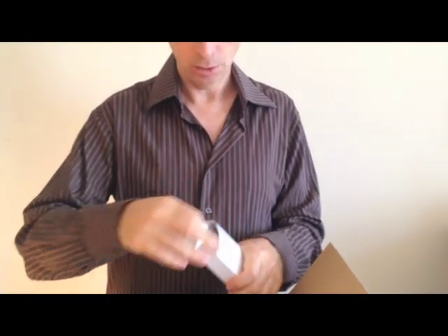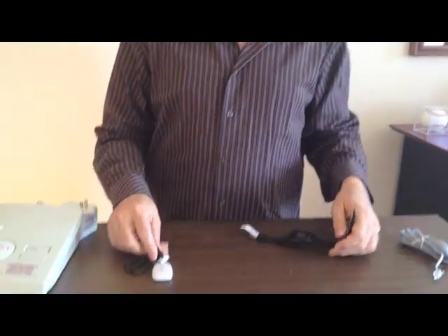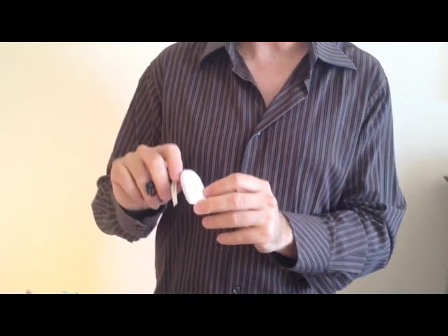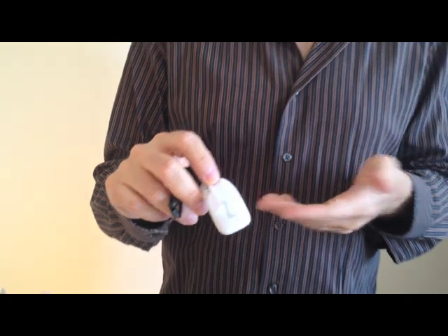These are the bracelets — the bracelet and the pendant. The bracelet actually looks like a watch; it's kind of cool looking. You can wear this thing and nobody would know you're wearing a medical bracelet — they'd just think you're wearing some kind of neat bracelet. And the pendant, obviously you take the warning label off, and you just wear it around your neck. It also looks like a little piece of jewelry, but of course you can put it into your shirt or blouse if you don't want people to know you're wearing one.